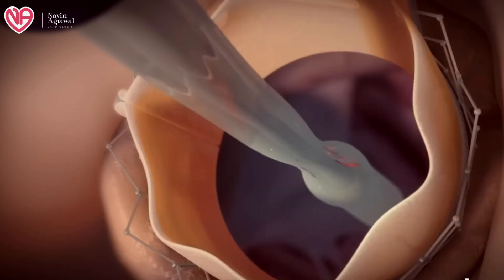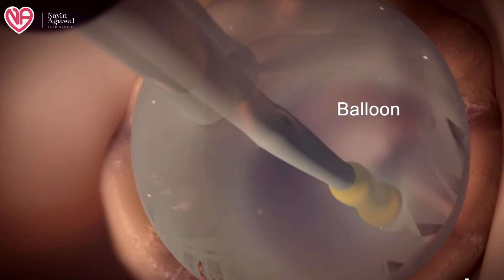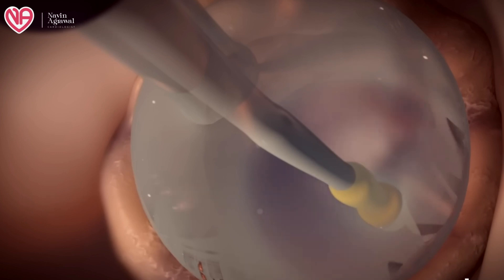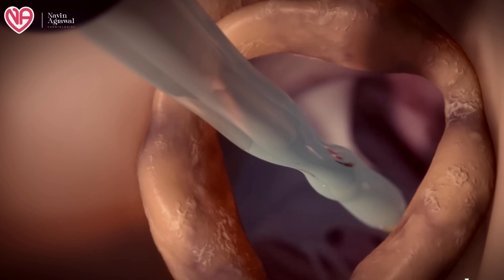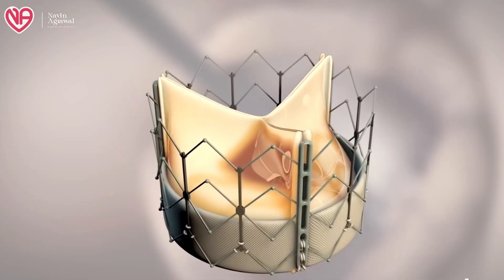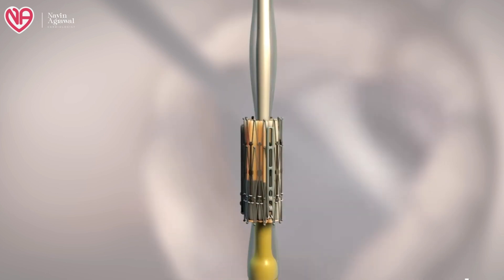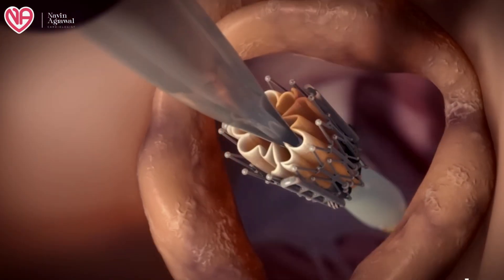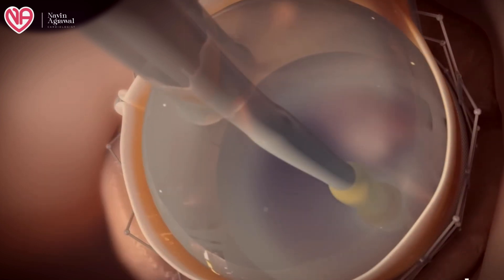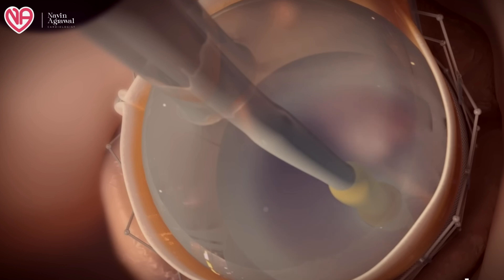The previously deformed valve undergoes balloon dilation before implantation of the TAVI valve. This crushes the valve leaflets towards the sides so that space for the new leaflet is created. After this, a stented mesh which contains the tissue valve is put at the site of the previous aortic valve. Once the stent is expanded — either via balloon dilation or a self-expandable stent — the stent mesh opens up along with the valve leaflets placed inside.